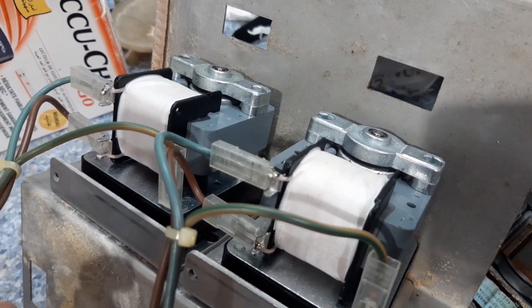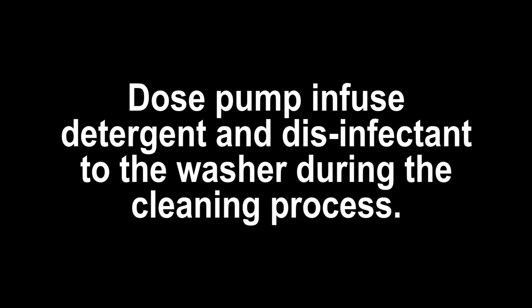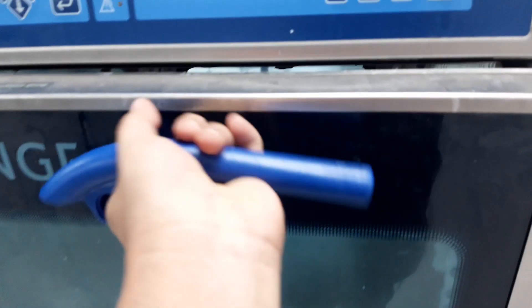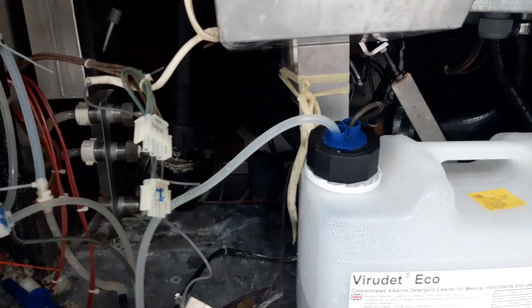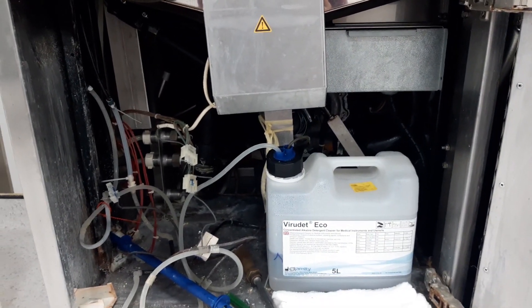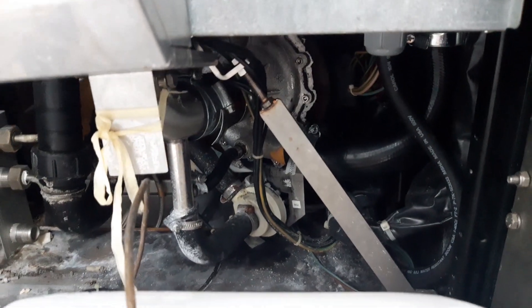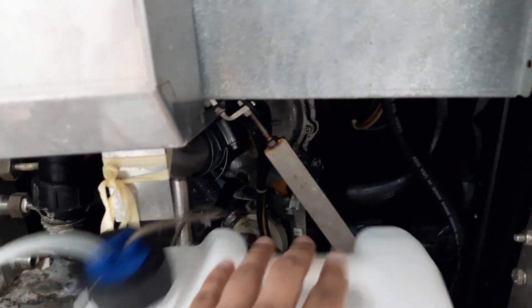And we will see if it is functioning properly now. Down here guys is where I removed the dosing pump assembly, so we will return it here also. And after that we will test this unit. By the way, beside here is the water pump — this big motor here — which is for the water supply going inside the washer.